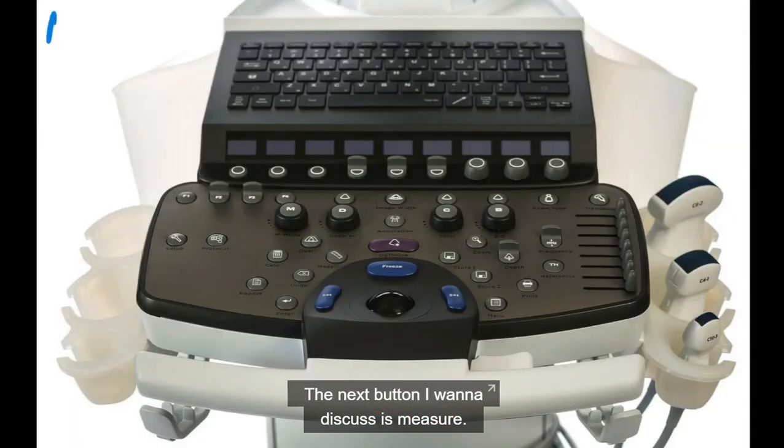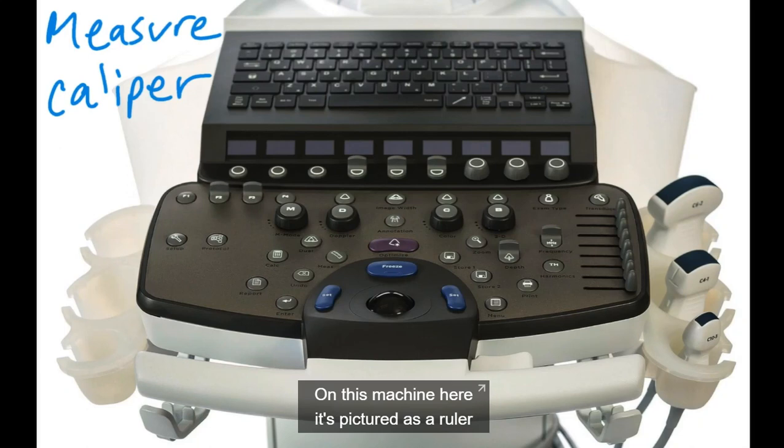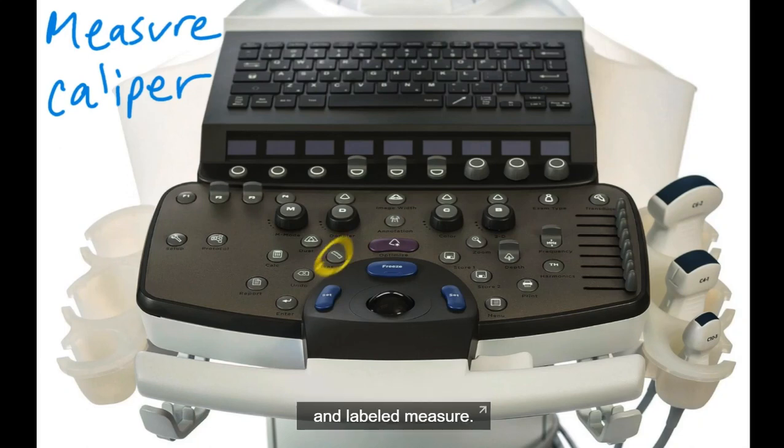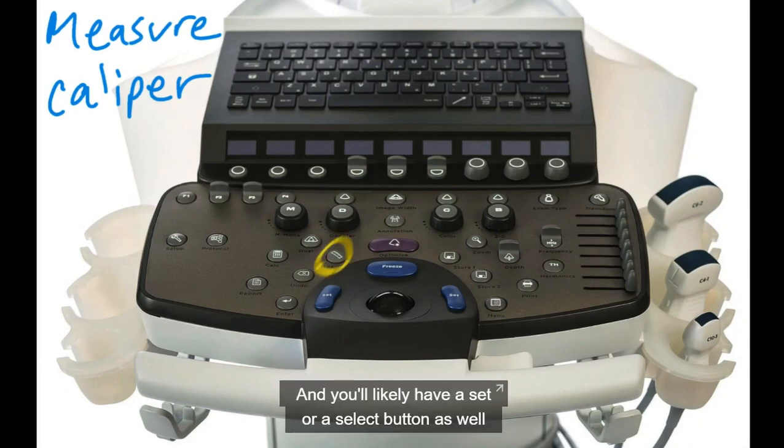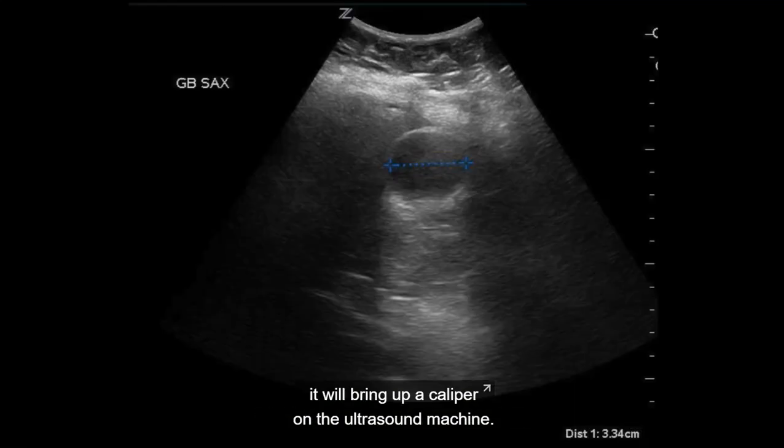The next button I want to discuss is measure. Now, it may be labeled caliper on your machine. On this machine here, it's pictured as a ruler and labeled measure. And you'll likely have a set or a select button as well that will help you switch between the caliper, as we're going to see.